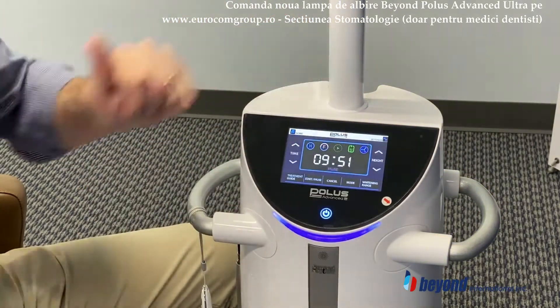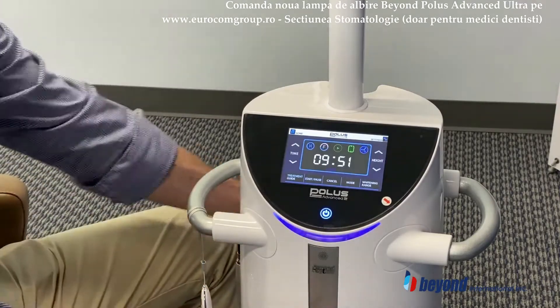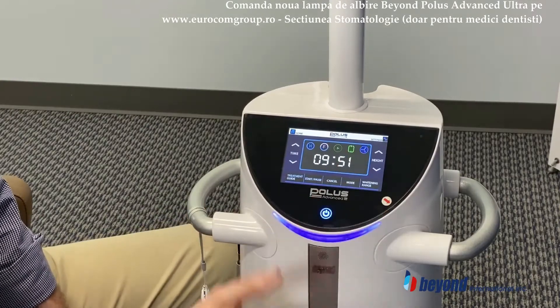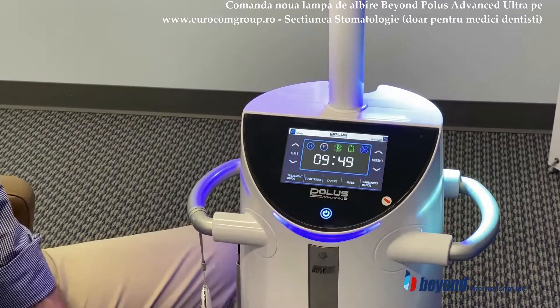This is the air ionizer that will always be working as soon as it is plugged in. It's going to be passively cleaning the air around the unit. And this is the fan — as I start the session, you're going to see the fan actually working as well.